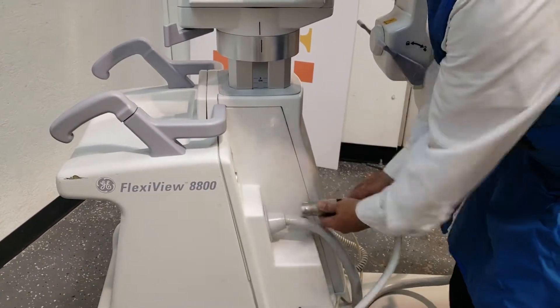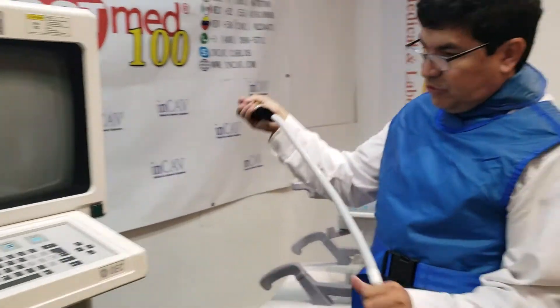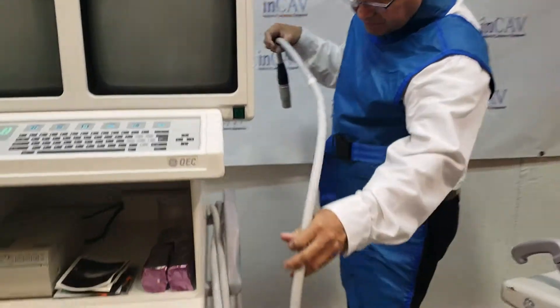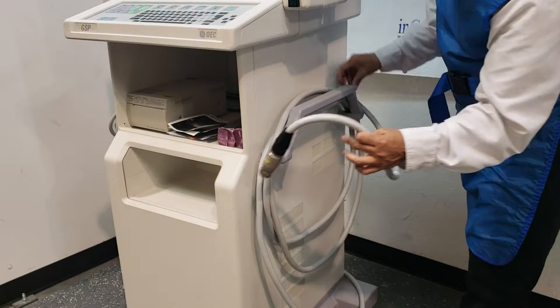Put it and pull it. This cable — you're not supposed to twist it hard. Just gently loop it here on the side.